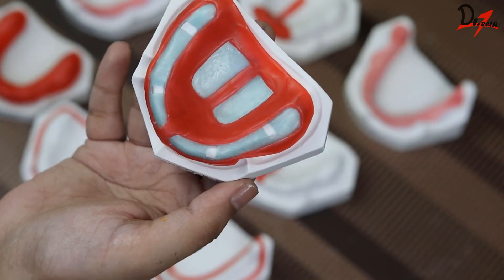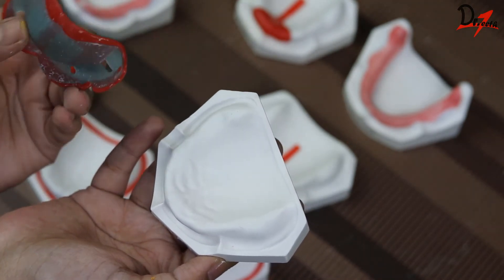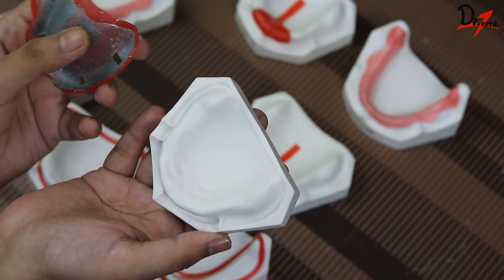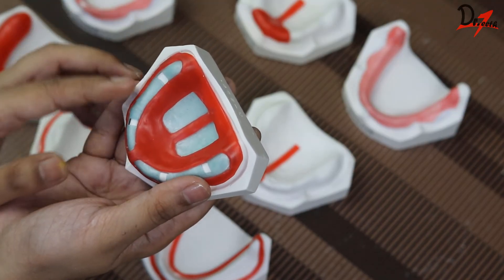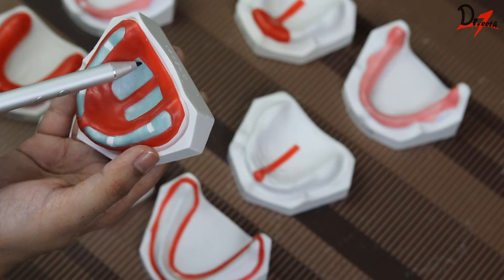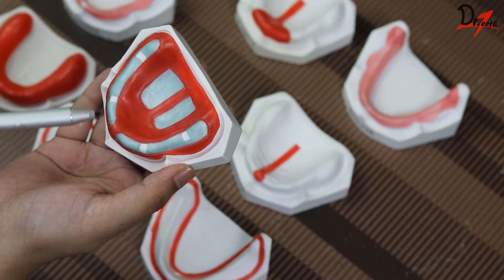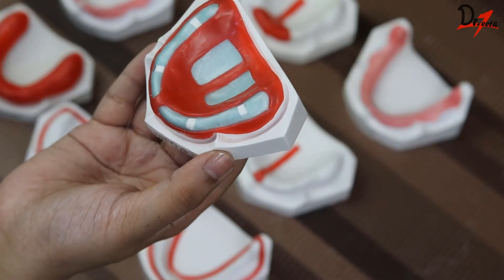Lastly, we have the Sanat Shetty design. Here you can see that we have two layers. First, a thin sheet of major connector wax is placed in all areas except the posterior palatal seal. Then above it, there is a 1.5 mm thick layer of modeling wax. The wax is removed from the horizontal slopes of the palate and from the crest of the ridge because these are the stress-bearing areas. We also have four tissue stops in the lower one.